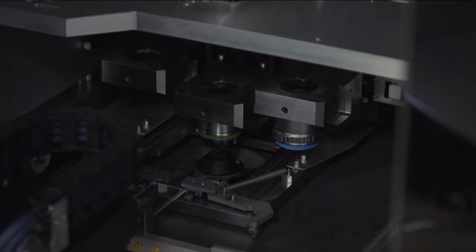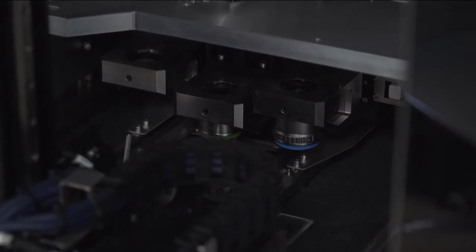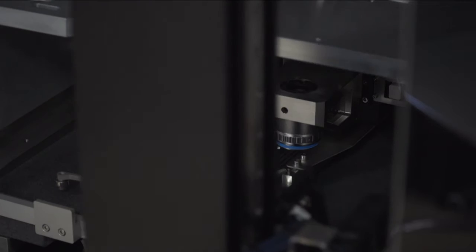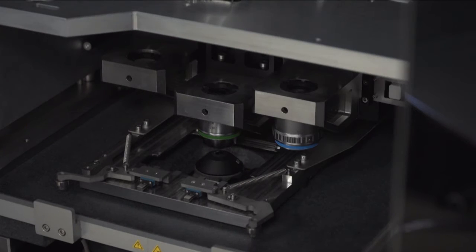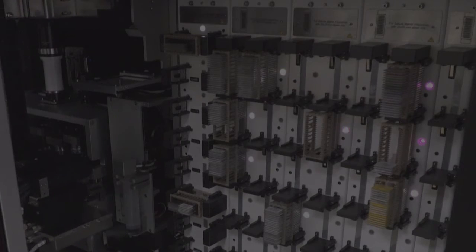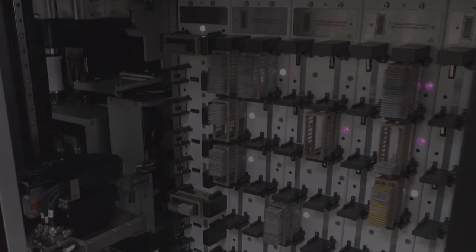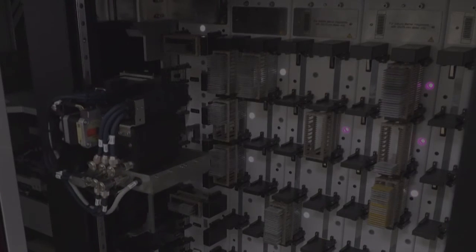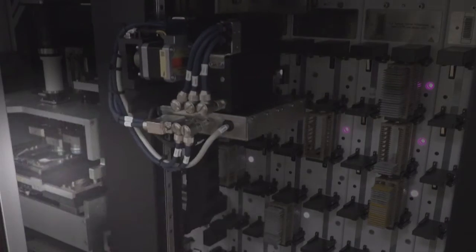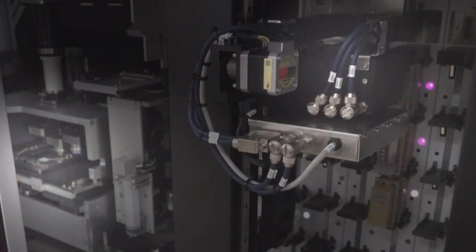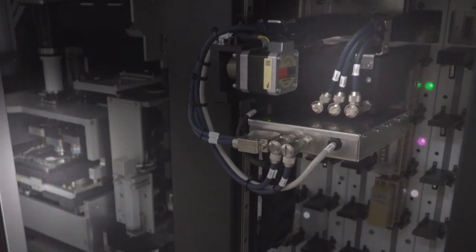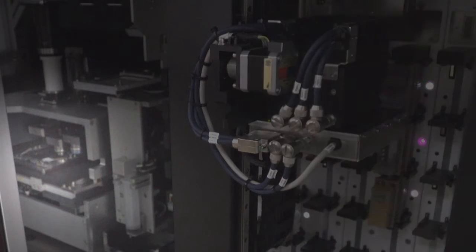Now, if more than one slide is scanned, then the next slide is taken from the rack, which we see in this video. You see highlights on the left showing that it's currently scanning, while in the top right it's grabbing the next slide.